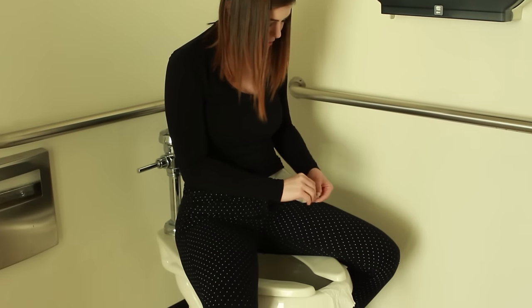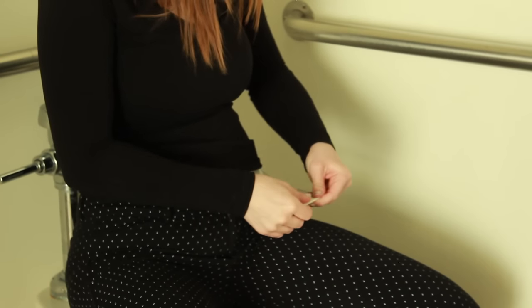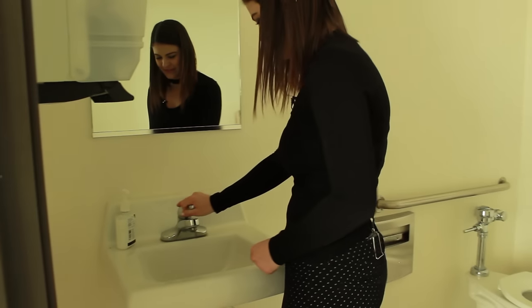Then whether you have a clip or a self-fastening system, you just want to roll it back up. Make sure that your ostomy pouch is secure and that it won't leak. I tuck it into my pants, flush the toilet, and go about my day.